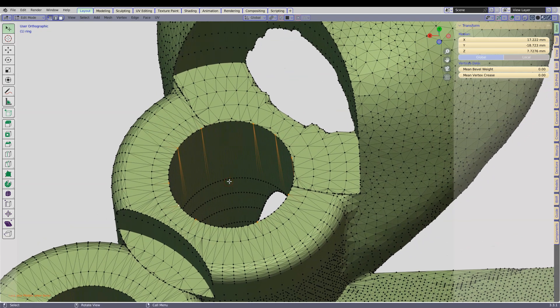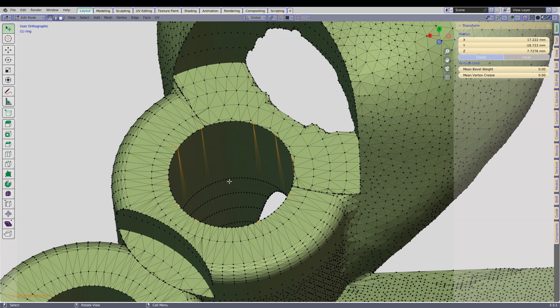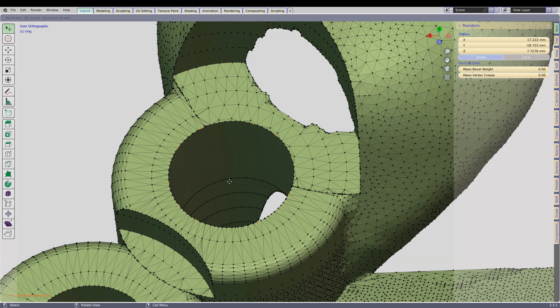Now what we want to do is click on Shift D. Hold the Shift down and then click on D on the keyboard. And then click on Enter. Now this has duplicated these vertices, so it's a double up of these vertices.